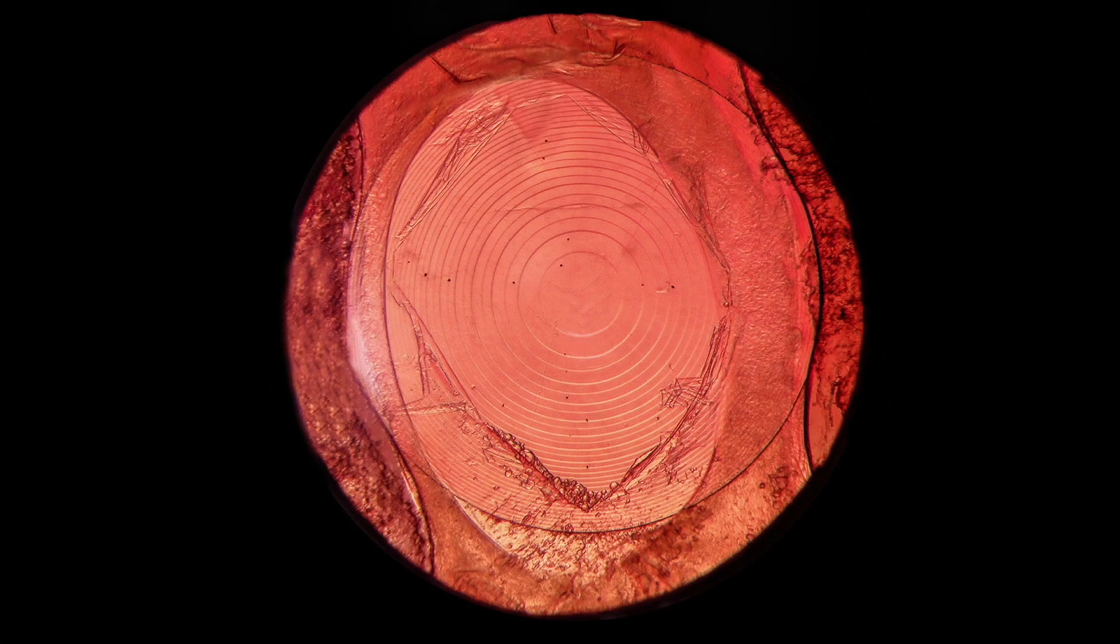One of the YAG laser treatment options is the Cruciate Pattern Technique. The YAG laser is used to create a cross pattern which allows the capsule flaps to retract out of the visual axis.